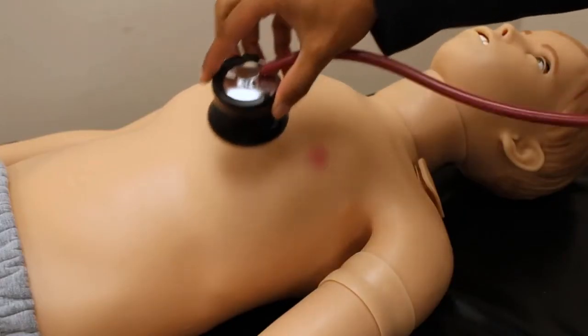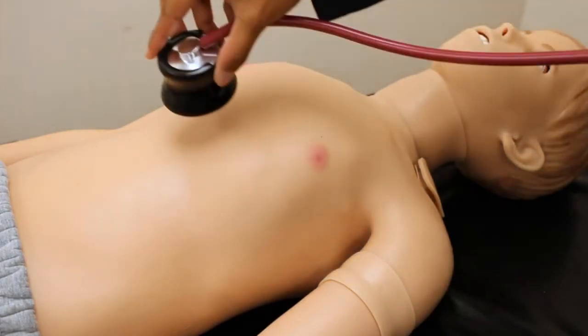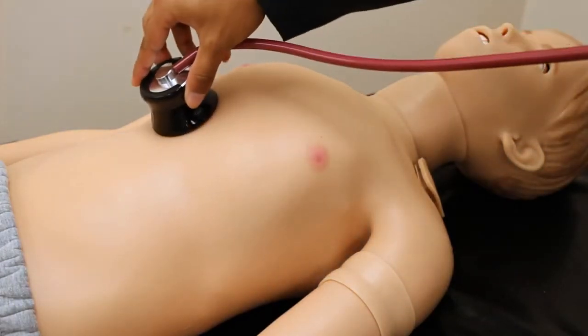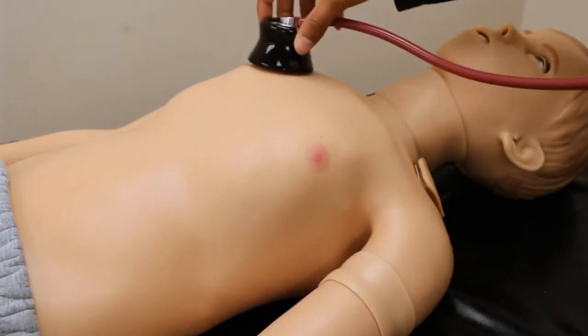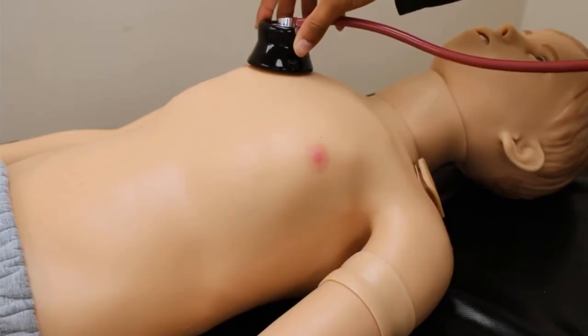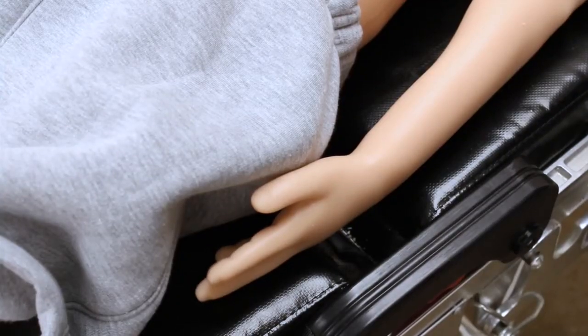Arthur has a library of auscultation sounds for heart, lungs, and bowels. He also has convulsions.